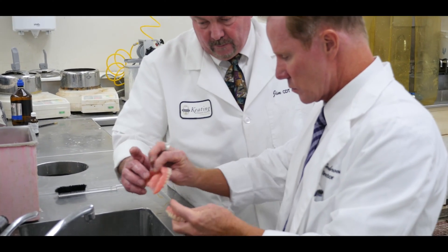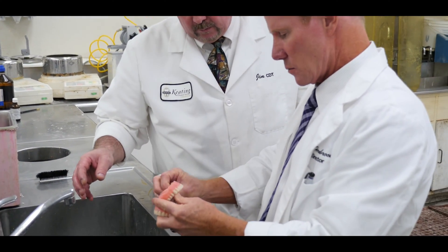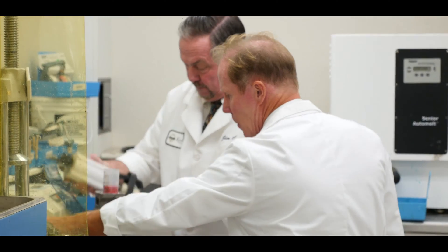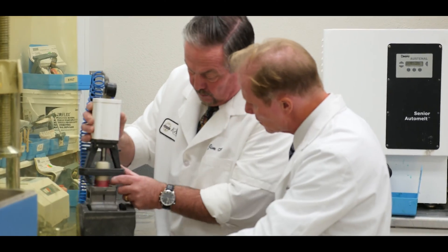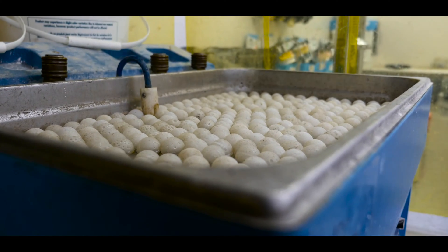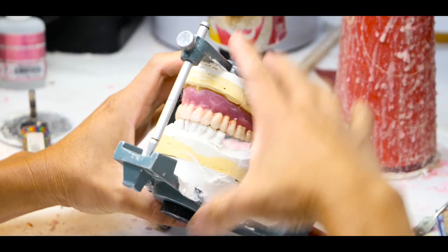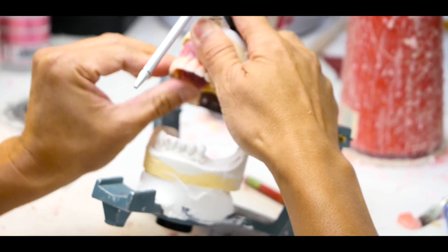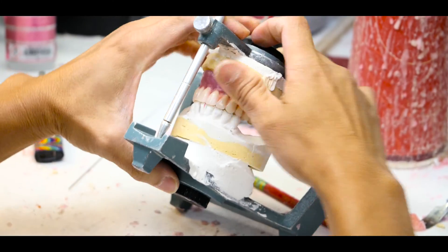So let's move forward and talk about our KDA Ultra Denture. Our Ultra Denture is our top of the line. It uses the Phonaris brand of teeth from Ivoclar. We use the Ivocap denture system to process the denture base. It's along the same lines as traditional flasking but it is cured under heat and pressure, so as the denture cures, new material is constantly being pushed in behind it. The denture base is very, very strong and very color-stable — it's an excellent denture.